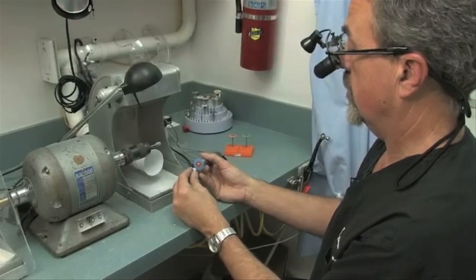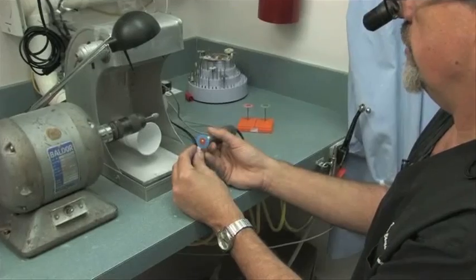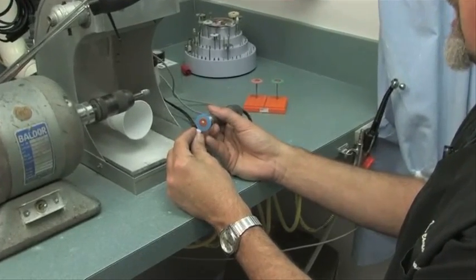We're doing an initial removal of the sprue, which is where the crown was attached to the block in the milling unit.